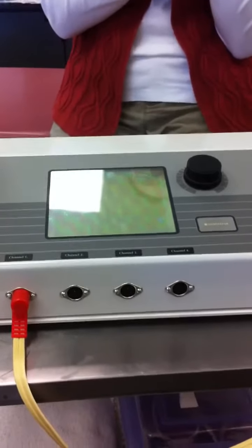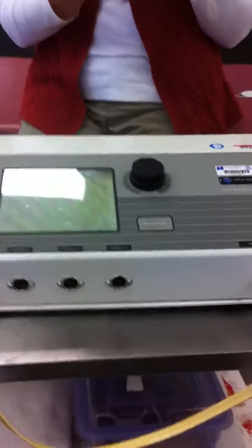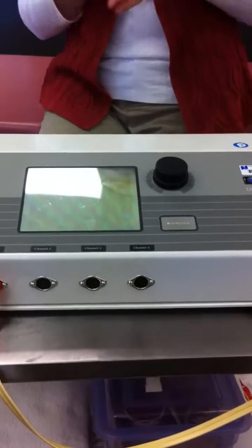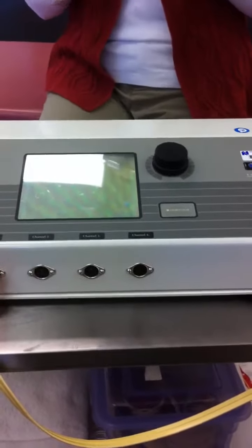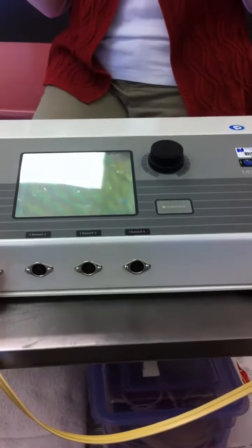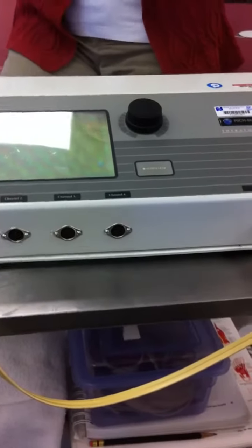Okay? Alright, so with this machine, what you're going to do is set up your electrodes, and you'll plug them in. There's nothing to change. It defaults to 50 pulses per second at a modulated pulse duration for an on and off time of 10 seconds on, 50 seconds off. There is no changing it. It's set in the machine, that's all.